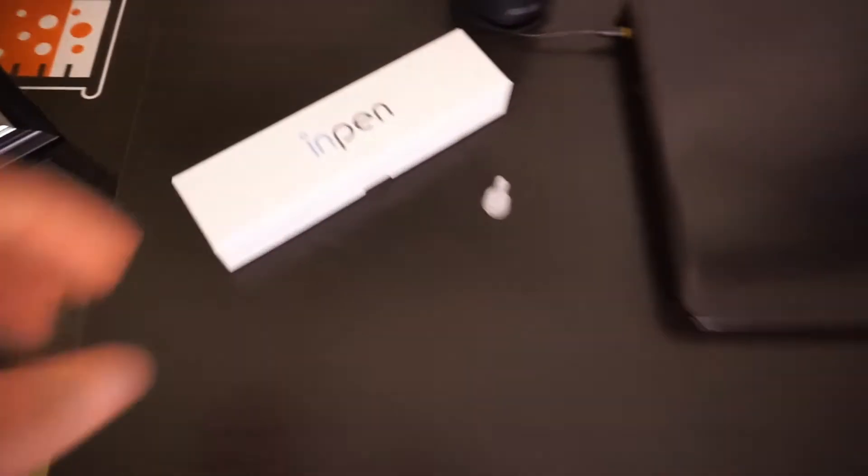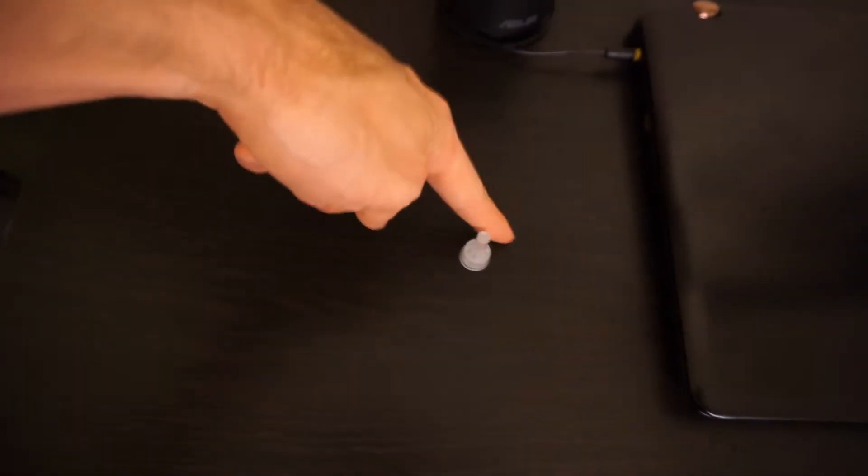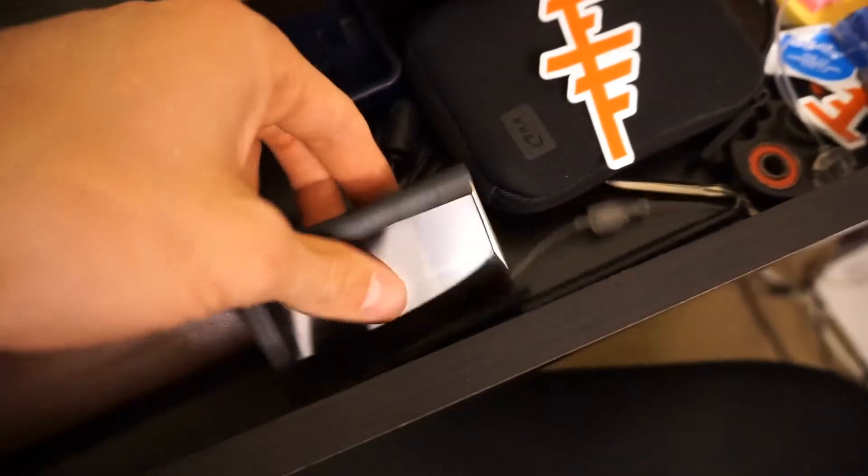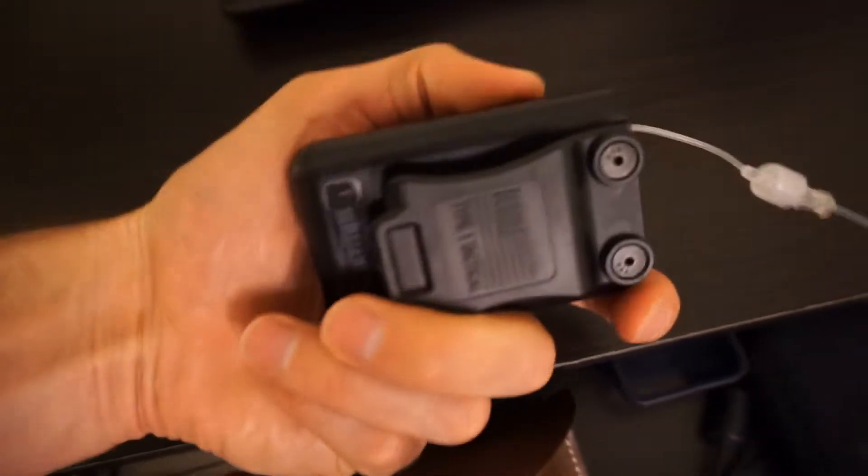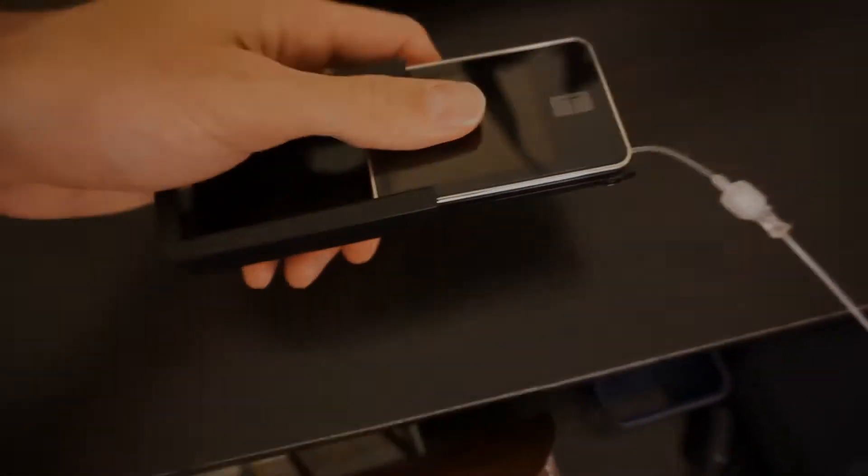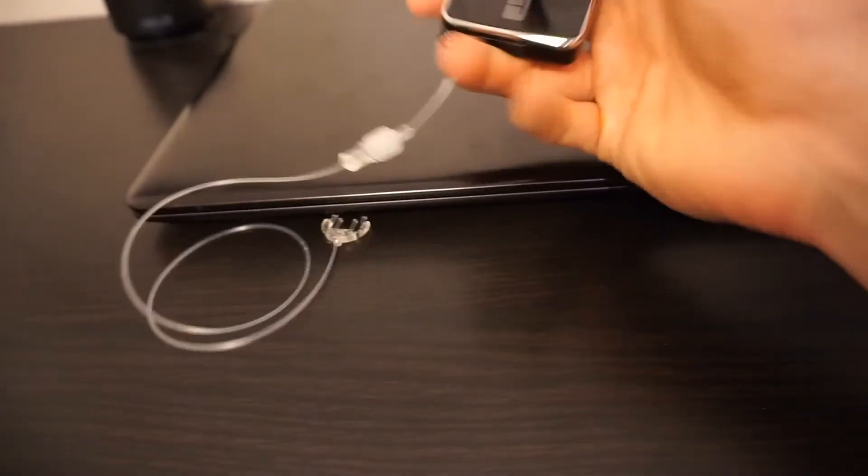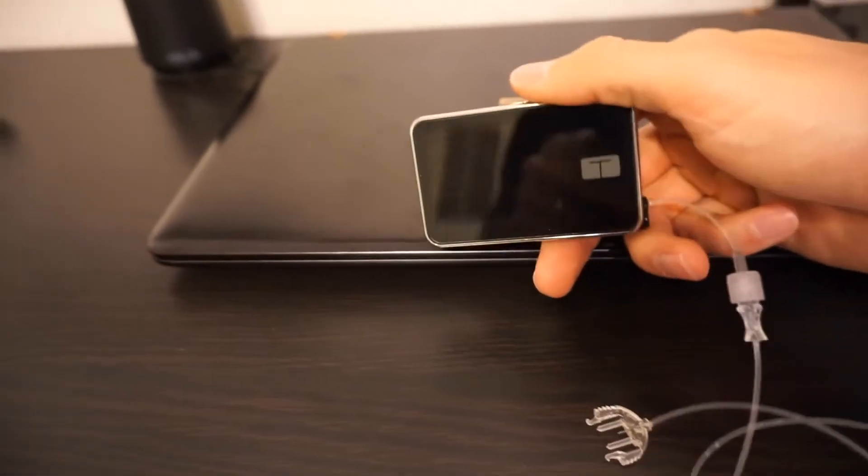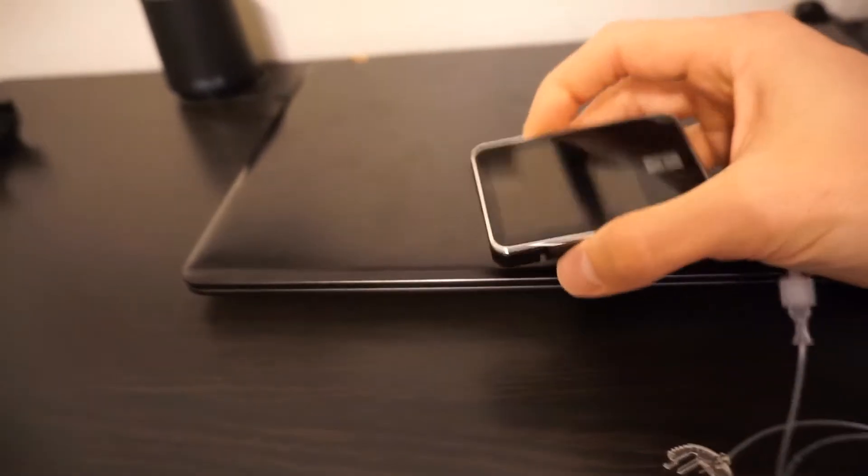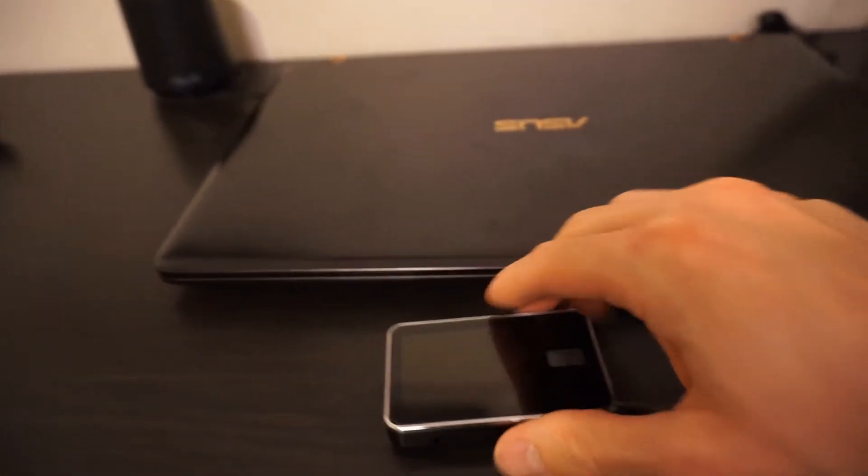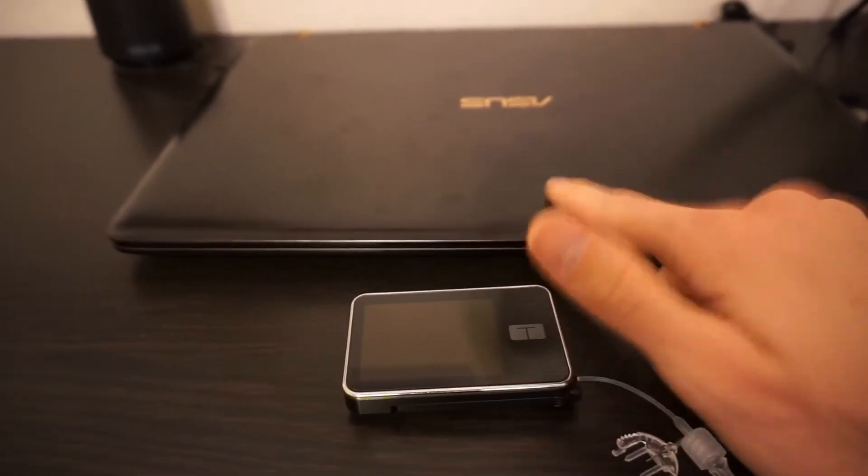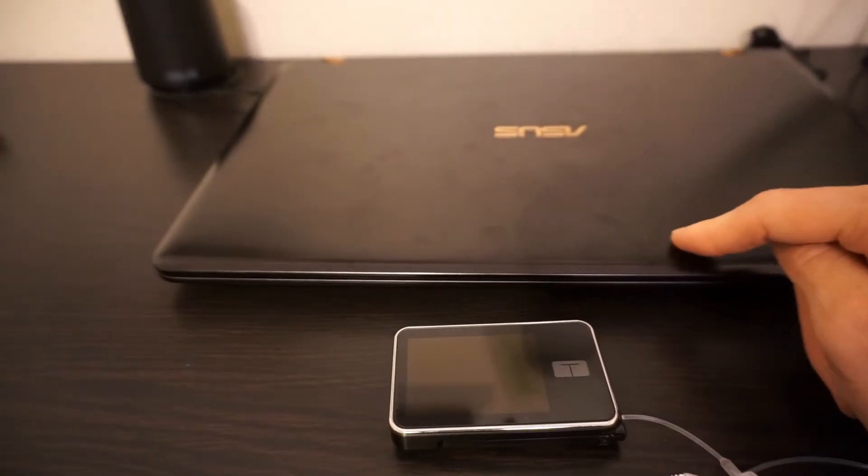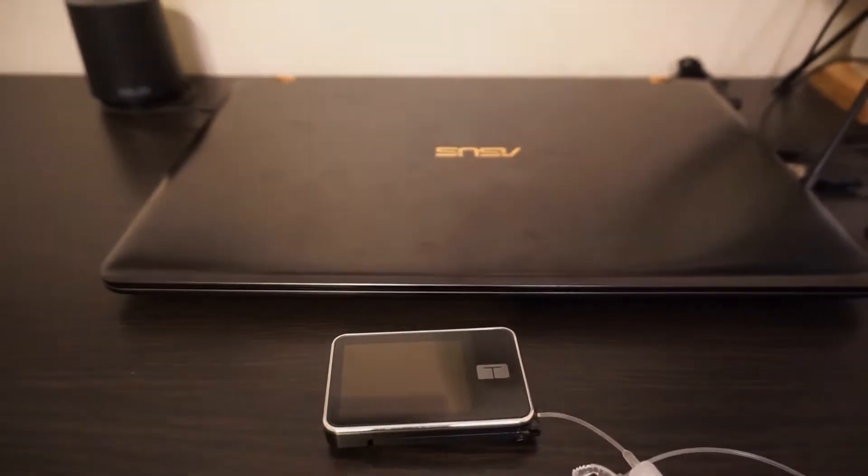All right, guys, so first step, we're going to ditch this guy because I no longer need shots. We're going to open this up, peep my awesome shoes because it's 10 o'clock at night. Oh, baby, I've missed you. It's the sweet type one tactical pump case that I use, by the way. Let's go for it. All right, guys, so when you're going for this, make sure you're ready for a pump site change because you will have to change the cartridge and all that stuff when you go for the update, so be sure that you're ready for that. I've run MDI for about a month now, so I've kind of prepared for this. I'm going to open up my laptop and show you guys a few screenshots of the course and the quiz stuff.